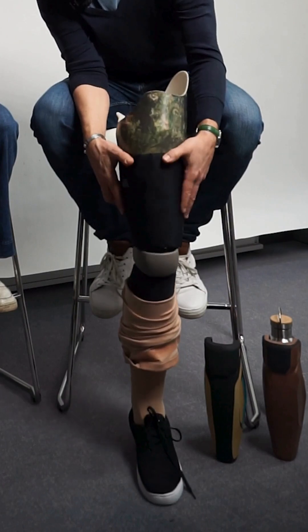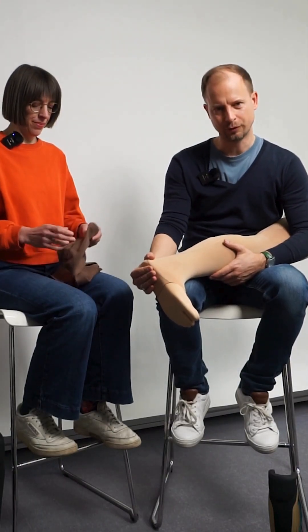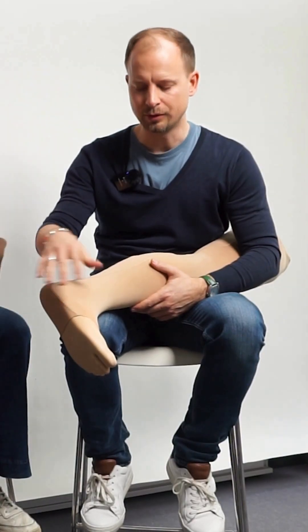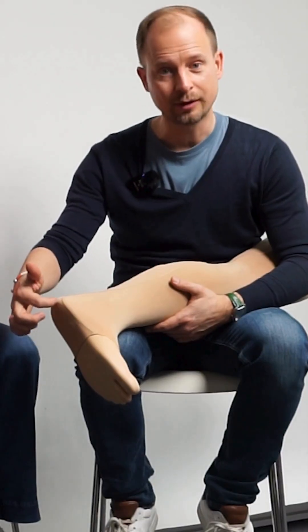So you have no restrictions while walking. Another advantage is that it goes over the heel of your foot, which is necessary to prevent your stockings from getting a hole so quickly when wearing daily shoes.